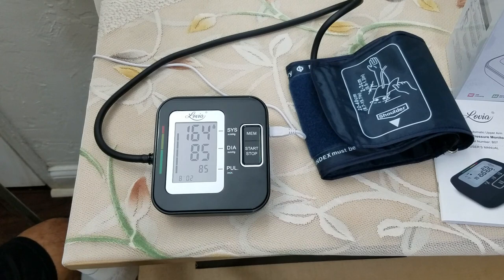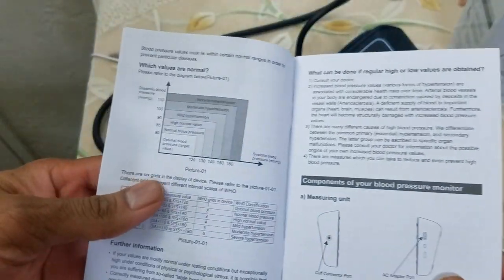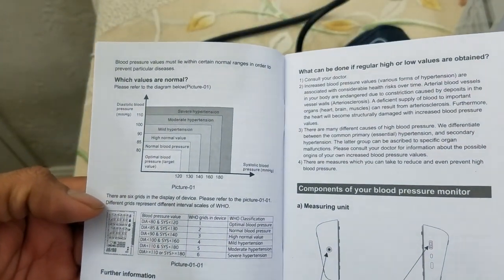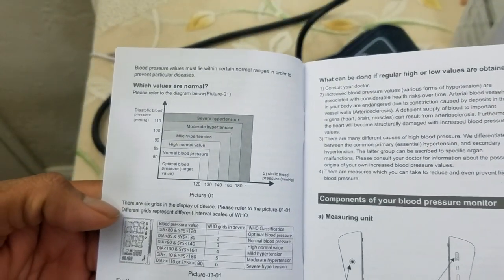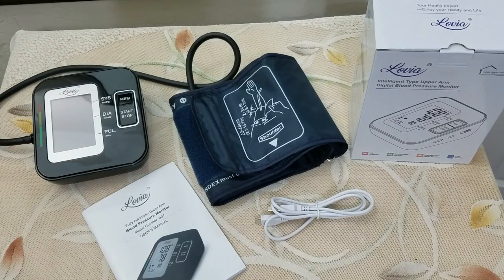As far as the diagnostic is concerned, you can check it right here — it's going to tell you if it's good or bad. Definitely a big thumbs up from me. It is definitely a good health-conscious gift for someone who has high blood pressure.